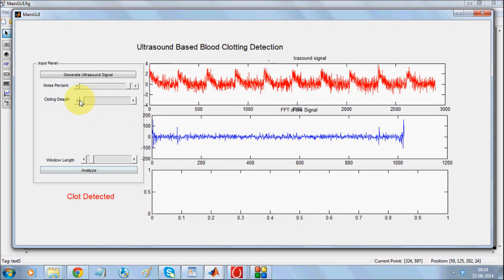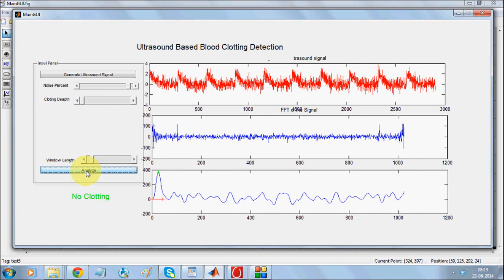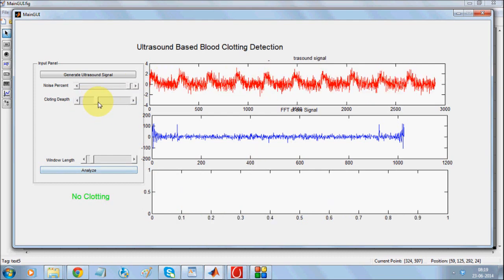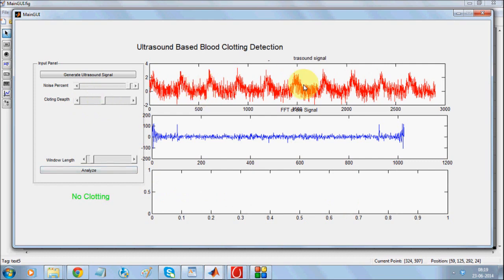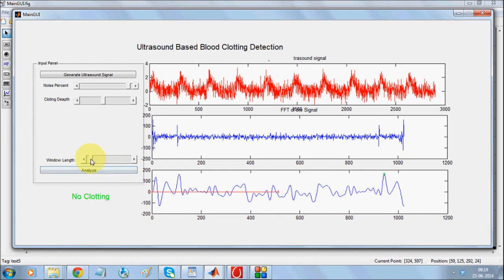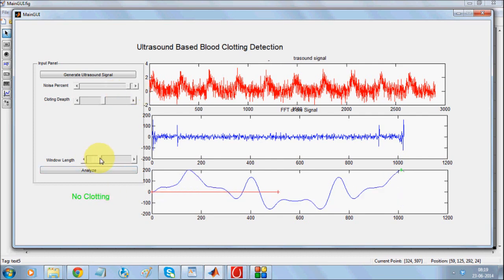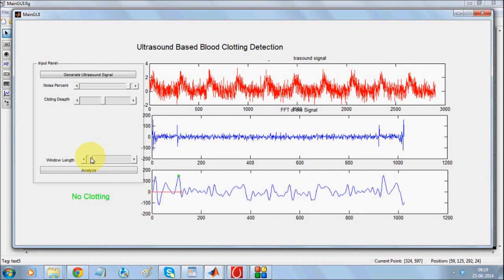With this noise, if I make clotting equal to zero, as you can see this is almost the same signal, but the system is still able to determine that there is no clotting. Even with so much noise, the clotting depth is undeterminable by the naked eye. We cannot determine it through naked eyes. And if we say analyze and adjust, this is quite a heavy noise which leads to misdetection — the system is unable to detect. So when noise is beyond a certain level, it becomes impossible for the system to determine it.